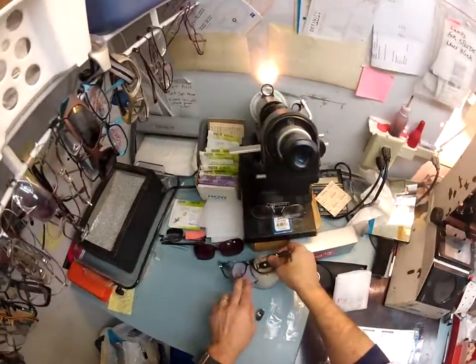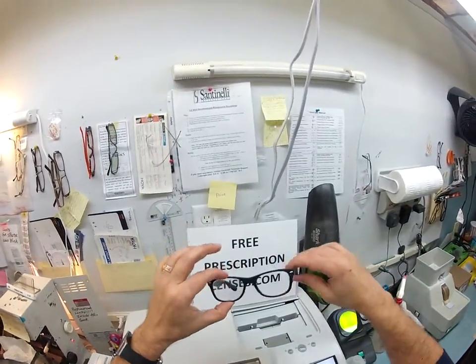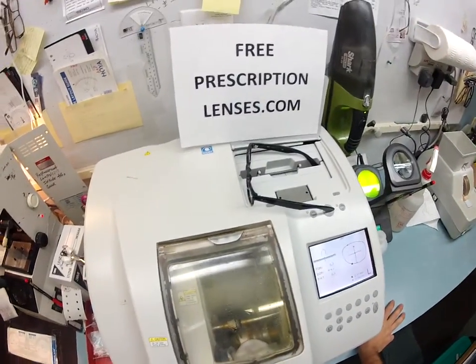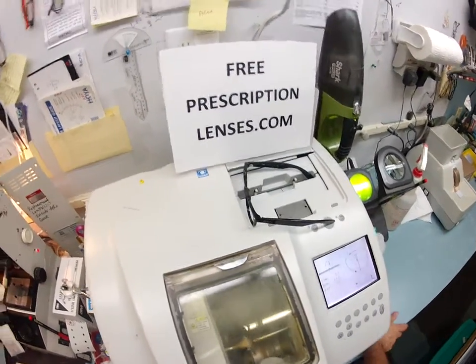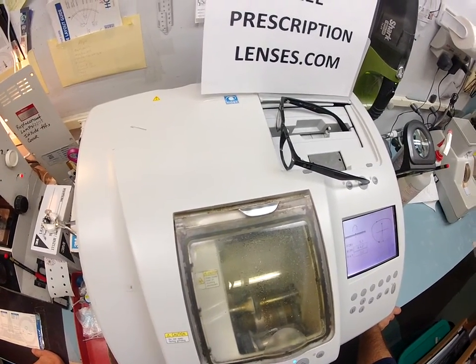One more purchase — I have to ship to Brazil now. So I'm going to take this block off the lens. And so far, that is your right lens. Your lenses are made of polycarbonate material, which is virtually unbreakable. It is bulletproof up to .22 caliber and has both UVA and UVB protection.